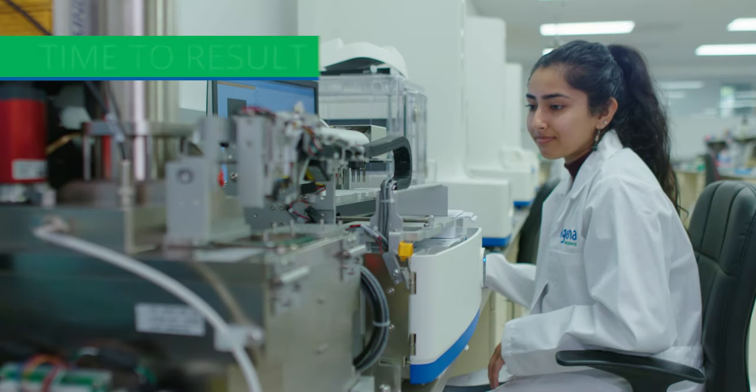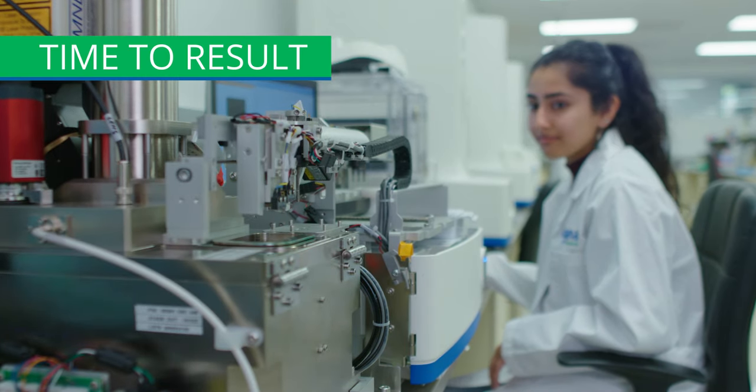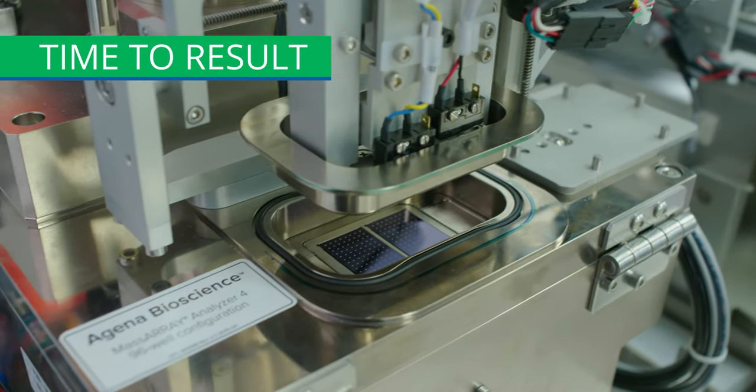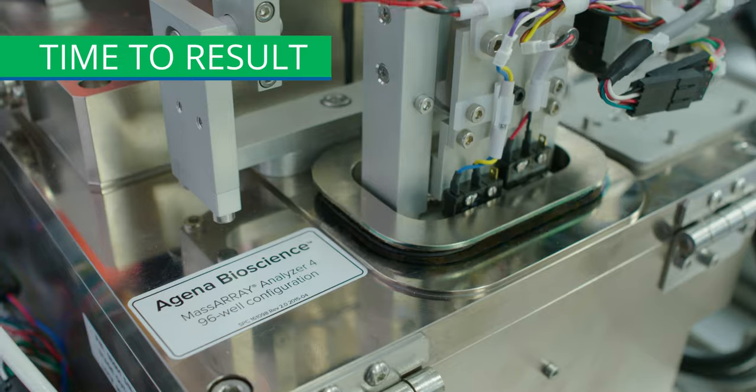The mass array system offers several key benefits to clinical laboratories. The first one is rapid turnaround time. From DNA to data, the lab can deliver in an eight-hour shift, and this allows them to provide results to physicians to support their patients very quickly.